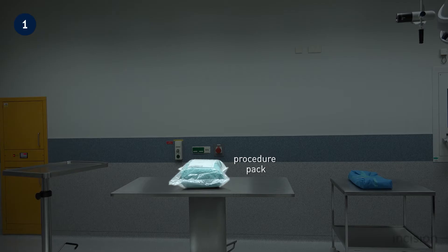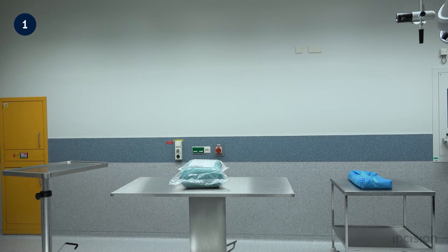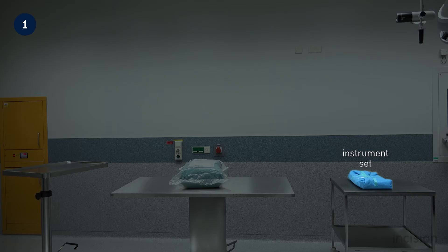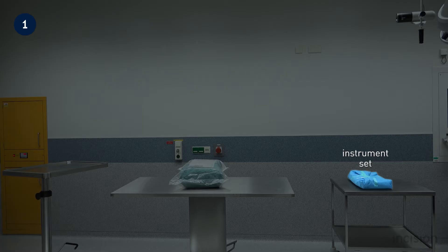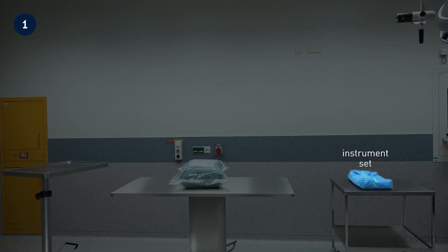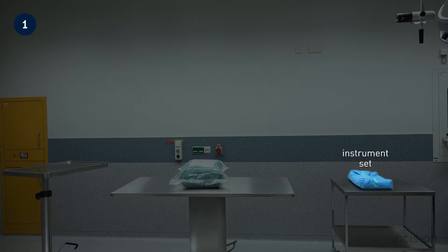Take note that the procedure pack is placed on the back table. In addition to the procedure pack, an instrument set has also been placed in view. The contents of this set will vary depending on the procedure, and the naming of the set will vary from hospital to hospital. In this film, a so-called basic surgical set is being used. The instruments contained in this set will be discussed in further detail later on in this film.